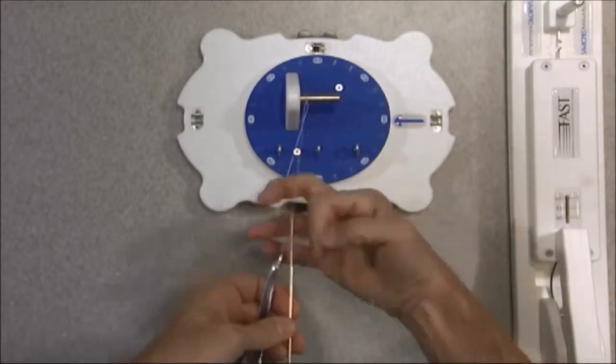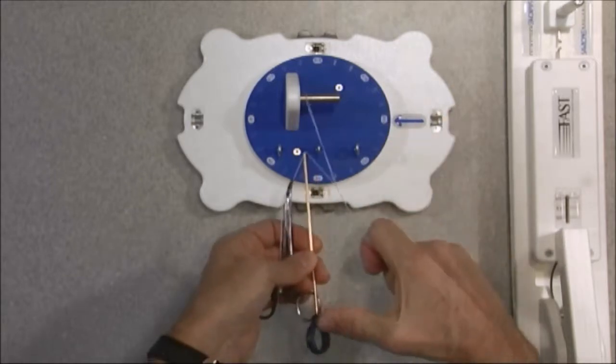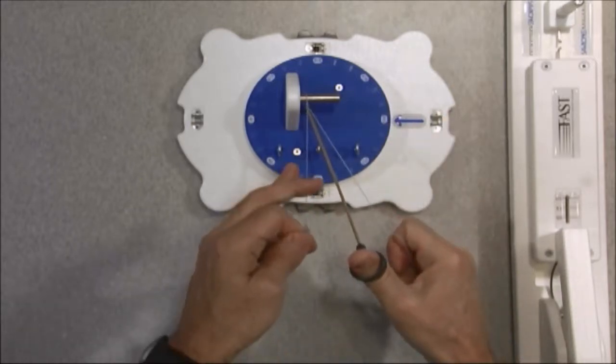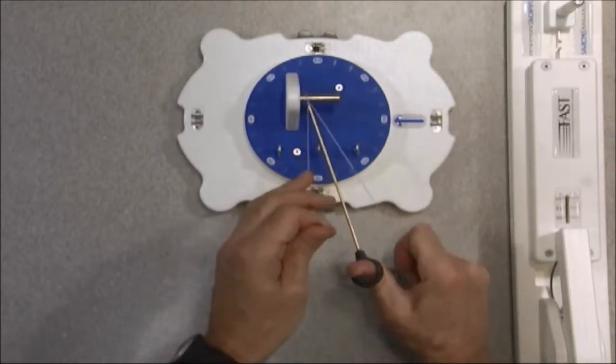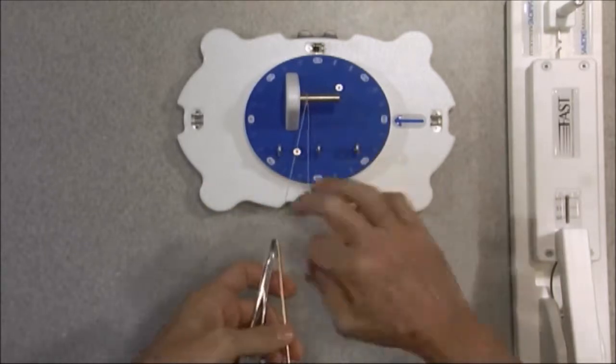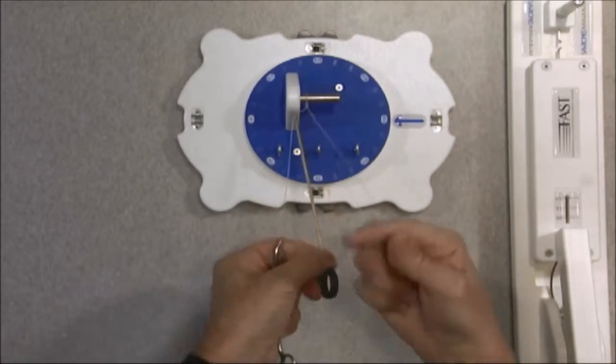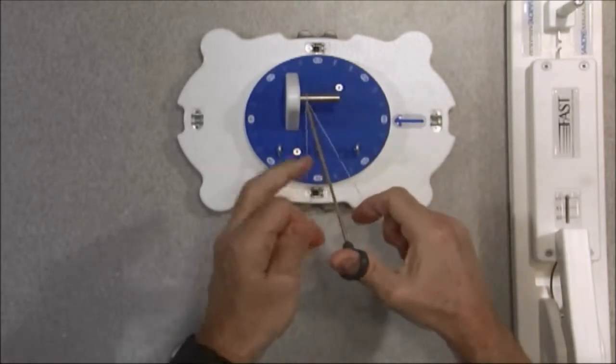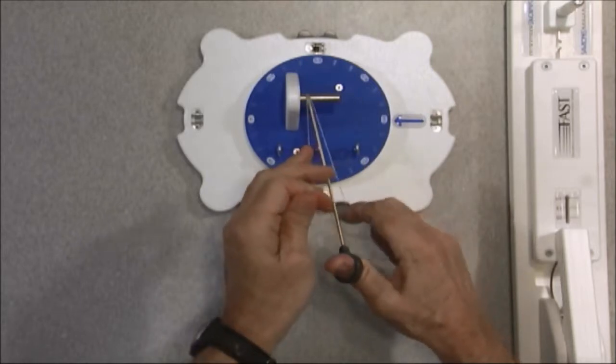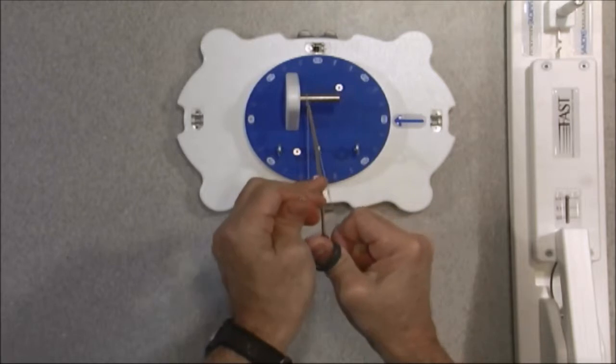I'm going to create my second hitch and reverse the post. So now my post is in my right hand. I'm going to come down, cinch that. Again, go really pass point. And I'm going to back this up with my third hitch. Come down and finalize that knot. And my goal is to really cinch this down so I can show you how this knot tester works.